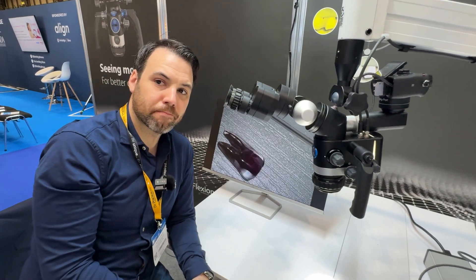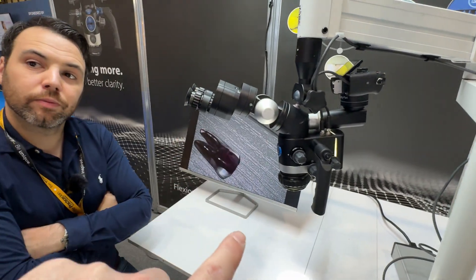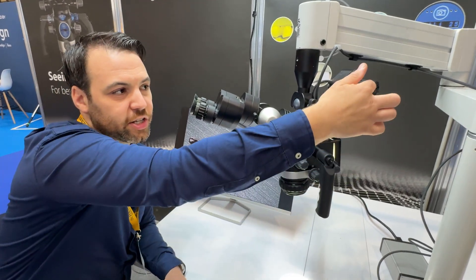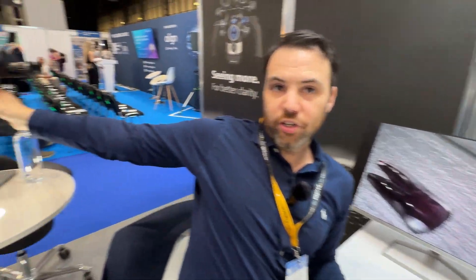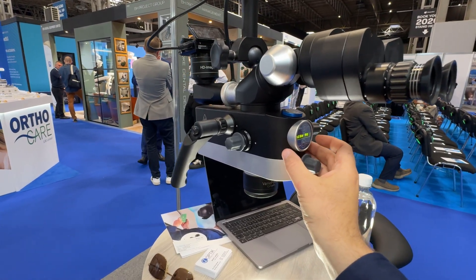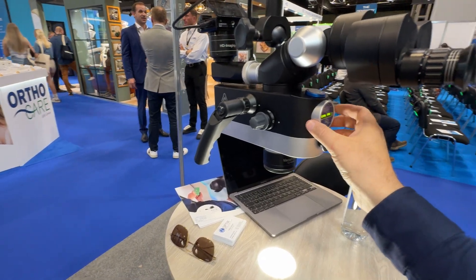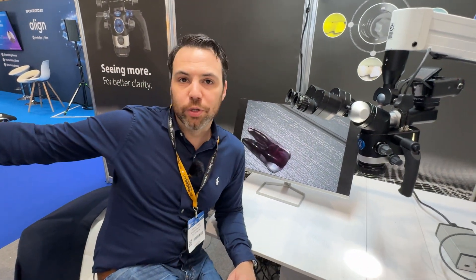The amount of times I've got a patient in the chair and they want a quick look at a crack tooth - I just pull the scope over. Do you go to the image here? With mine it's a press. Is there functionality to take pictures from the scope? We supply a remote control - it's about this big, there's a sensor here and you just press the button. There is a model called the advanced SU which has that convenience right in front of your nose.